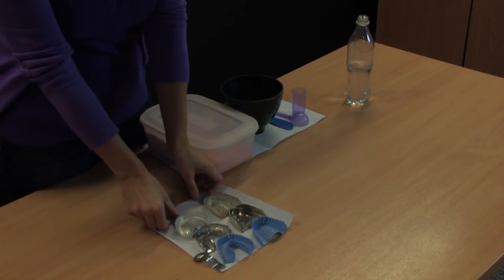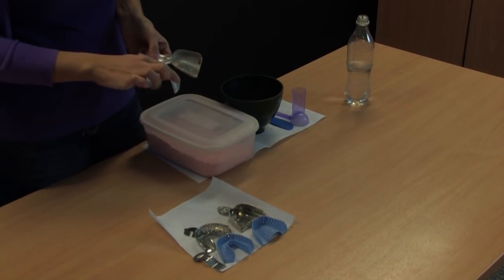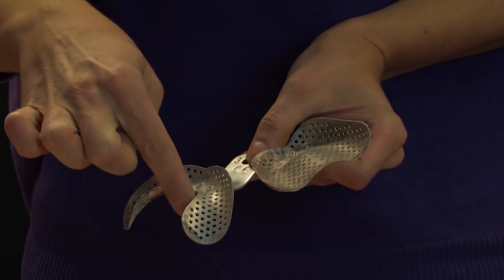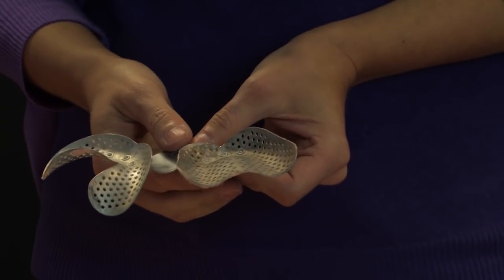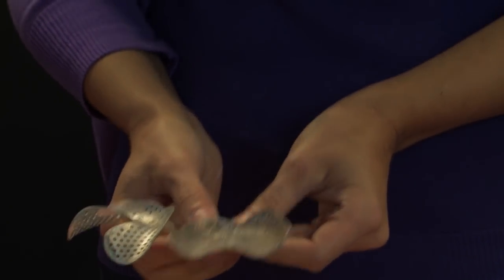The difference between the two is that for the lower impression trays there is a gap in the middle where the patient's tongue will go when this is placed in the mouth.